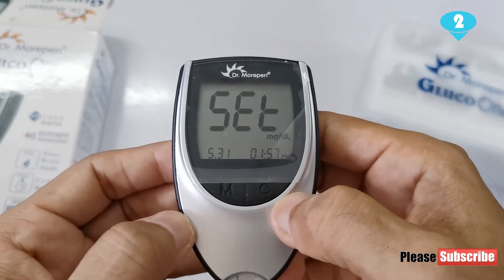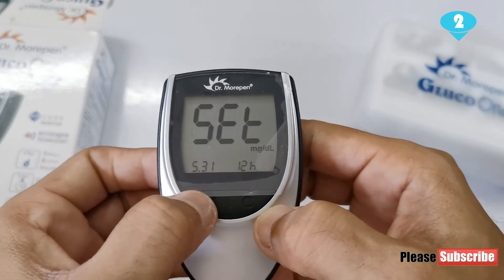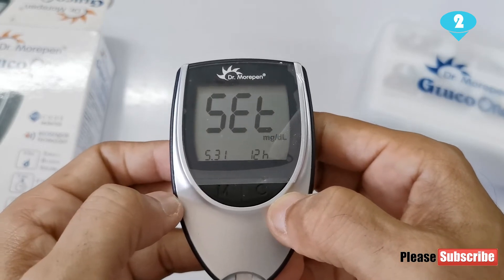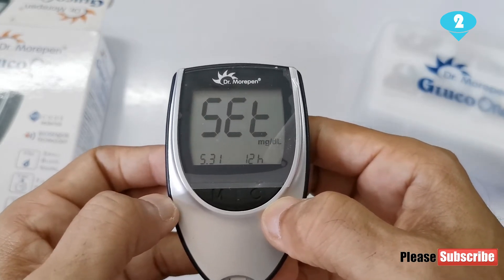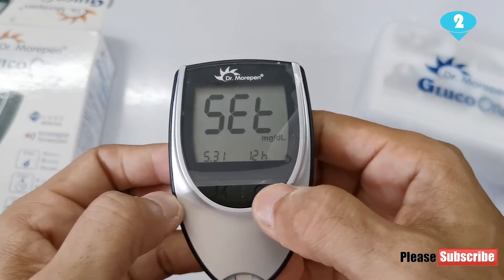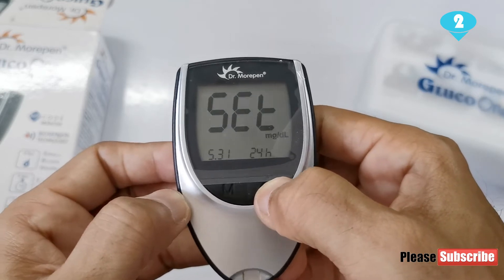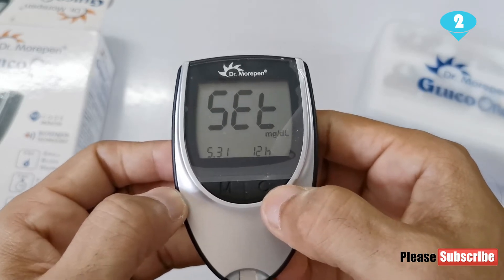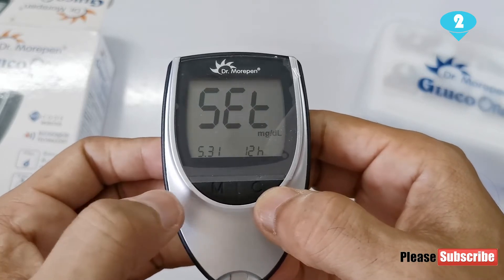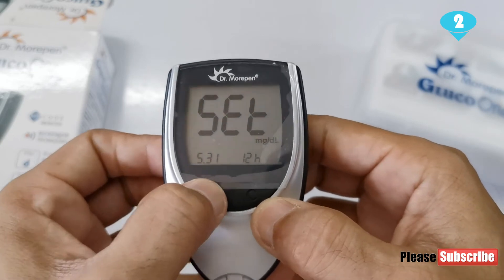Now I will hit the M button again and it will show me if I want a 12-hour format or a 24-hour format. If I hit C it will change to 24 hours — you see, it changes to 24 hours — but I want a 12-hour format, wherein it's easier for us Indians to know what the time is. So I've kept it as the 12-hour format and I hit the M button again.